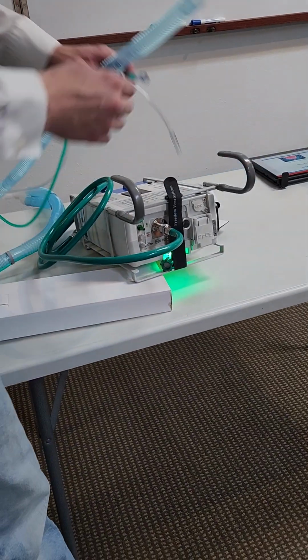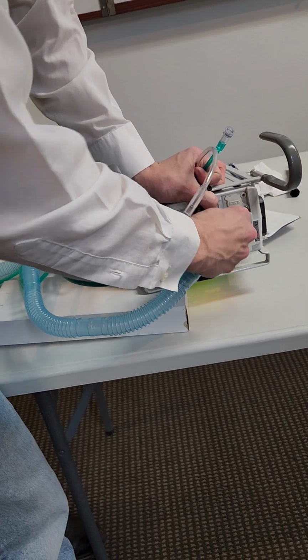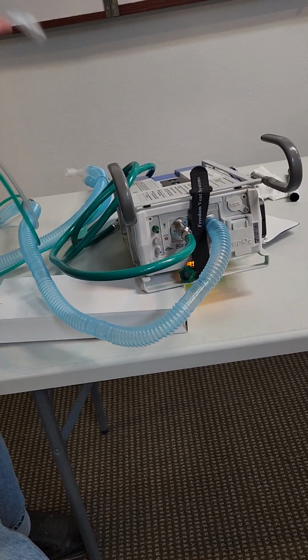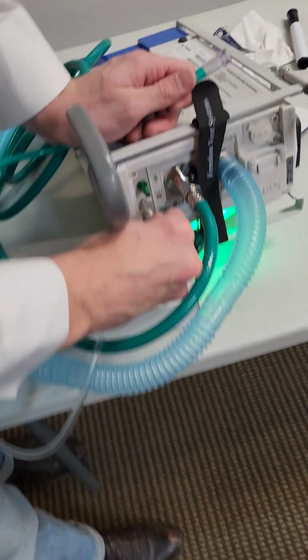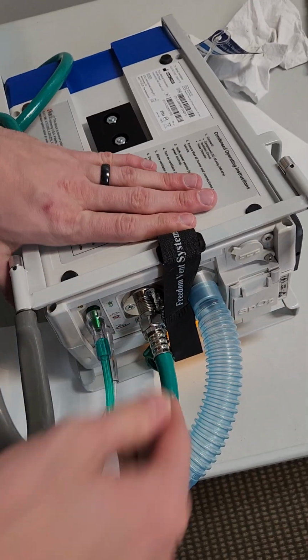Yeah. So you can hook up your gas tube here. It slides on there. It's kind of flimsy, so it might bend one way or the other, but you just stick it on there and it stays on good. The clear and green hose will go onto the silver port with the clear, and the green hose will go onto the green port.